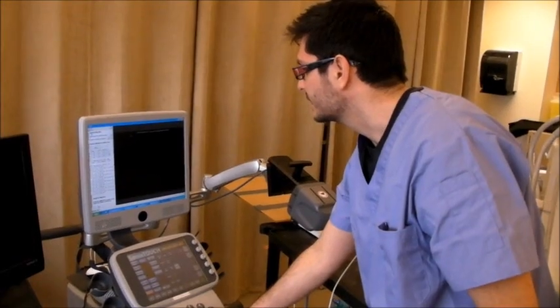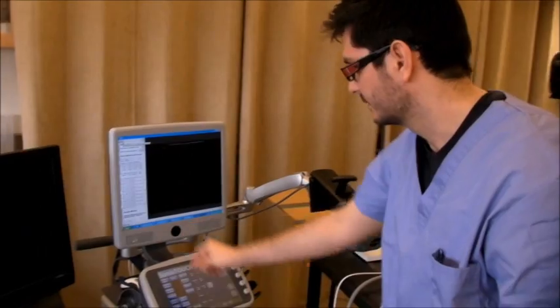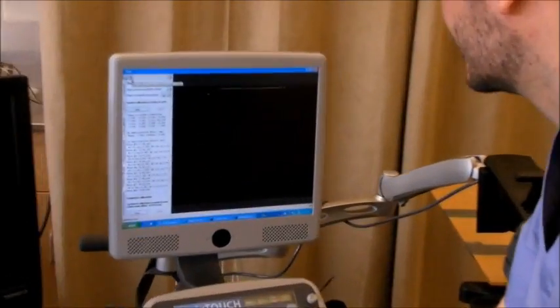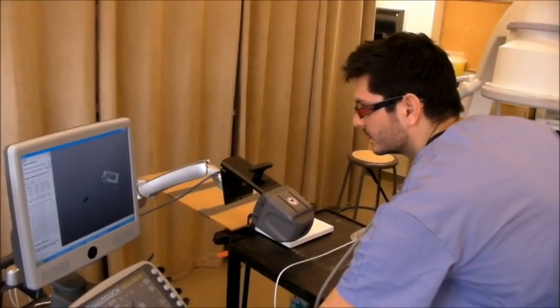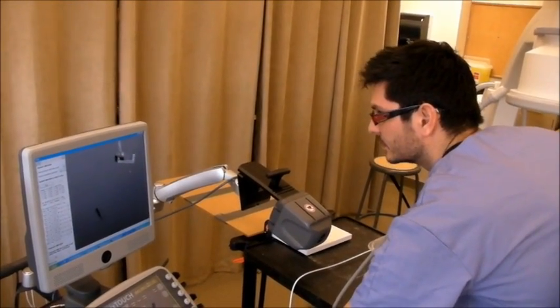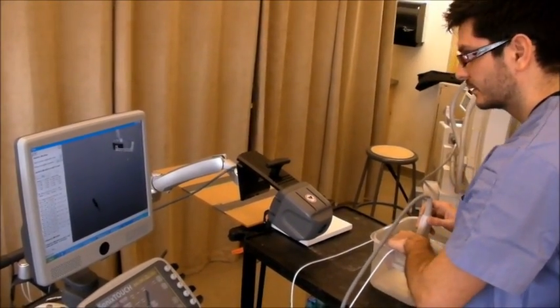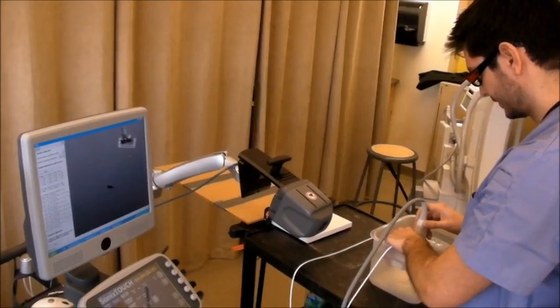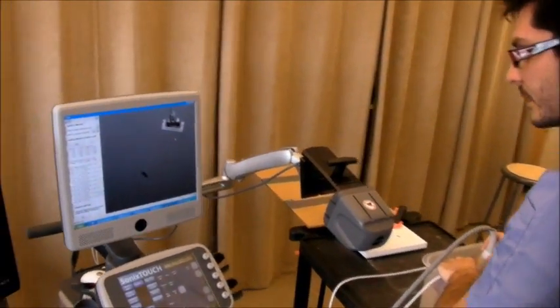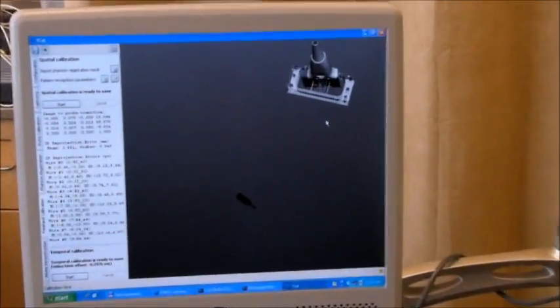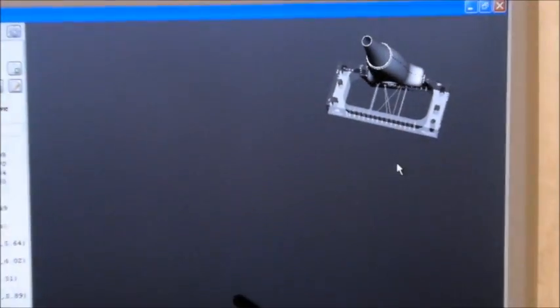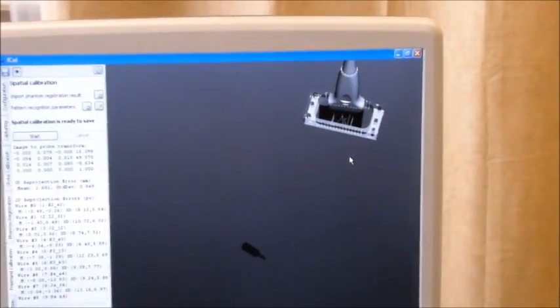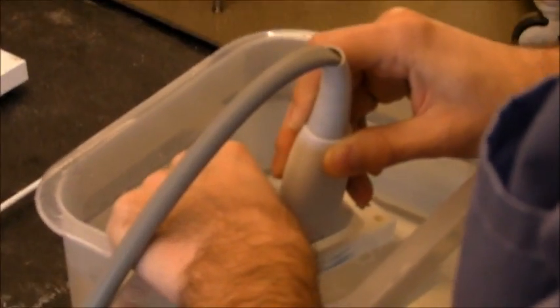We can check the result of the calibration by clicking that eye icon on the top. You can see the wires inside the Phantom. And, when you scan it, it should show that the image is more or less in the right position.